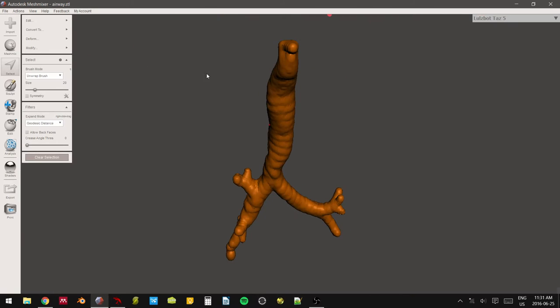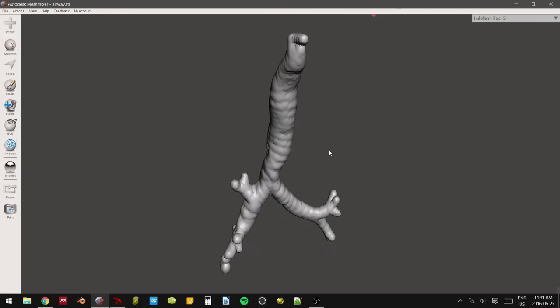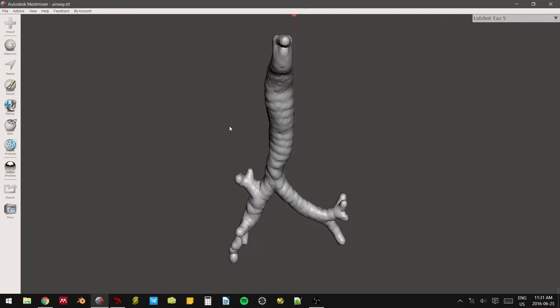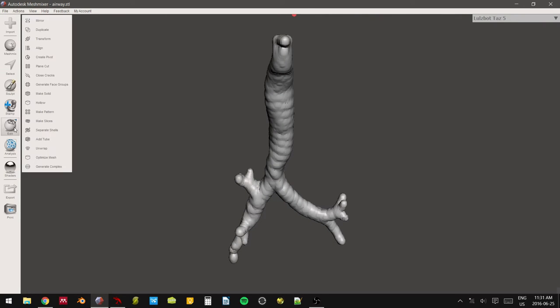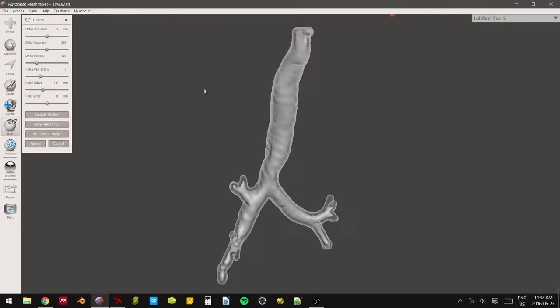So the next step, now that we have our pseudo-cartilage, is to make this entire model hollow so that we can stick our bronchoscope down, or our intubation tube. In order to do that, you're going to go into your actual edit menu. And luckily, inside MeshMixer, there's a hollow function. You're going to hit Hollow. It's going to calculate it out. And there it is.